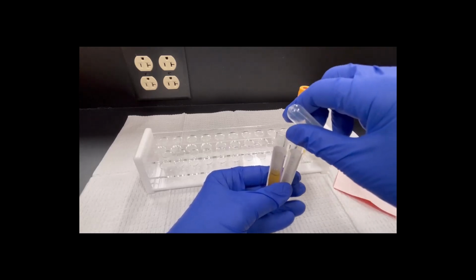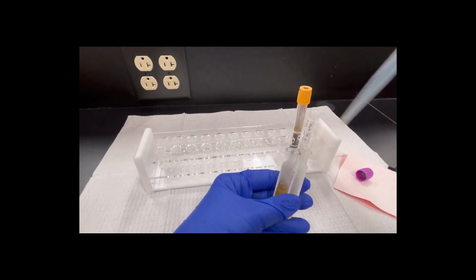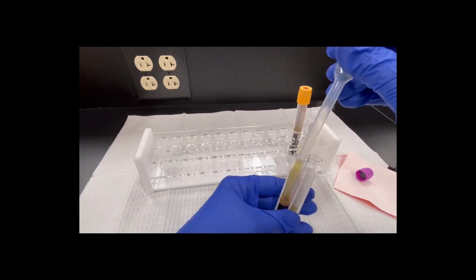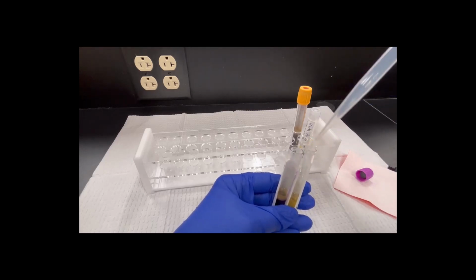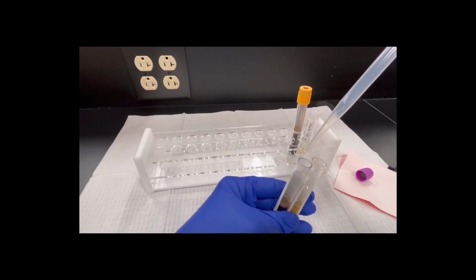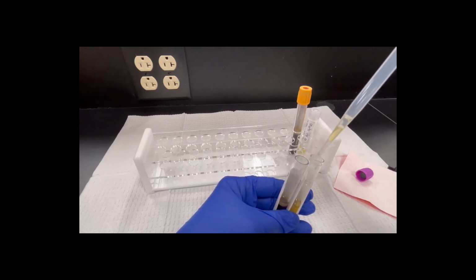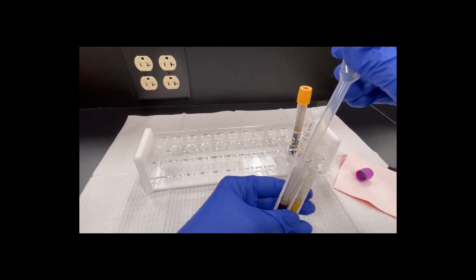Now, if something happens with this next squeeze and I get some cells, at least I have some plasma off. But we're going to go again, I'm going to squeeze it, go halfway down, and pass that off. So each time I get a little more. Let's try one more. I'm going to go halfway again, got a little bit more, pass it off. Now, I'm going to squeeze it one last time. Let's see if I can do this.